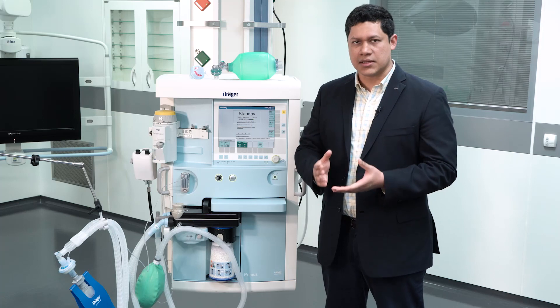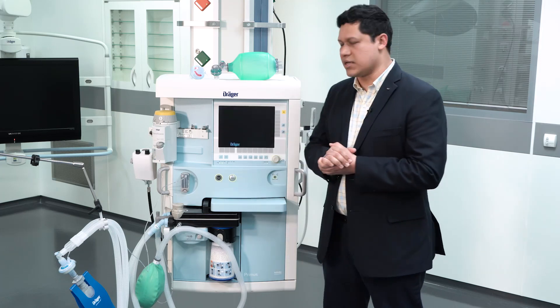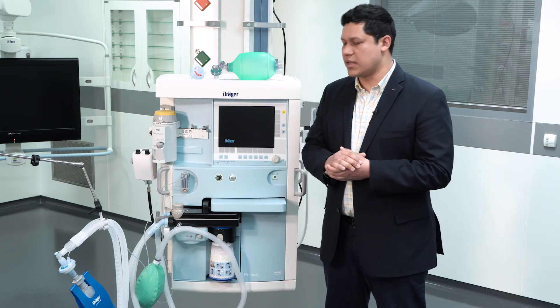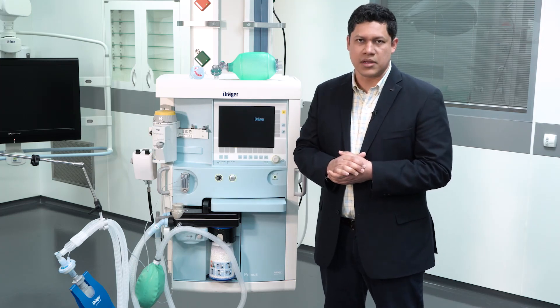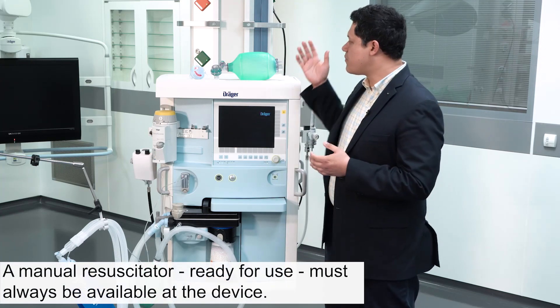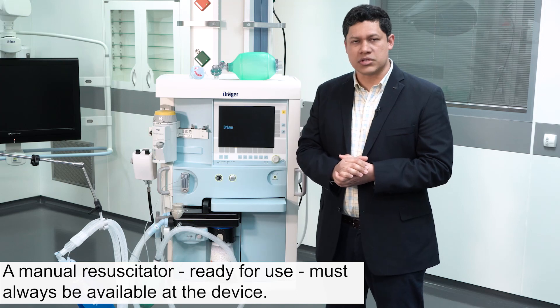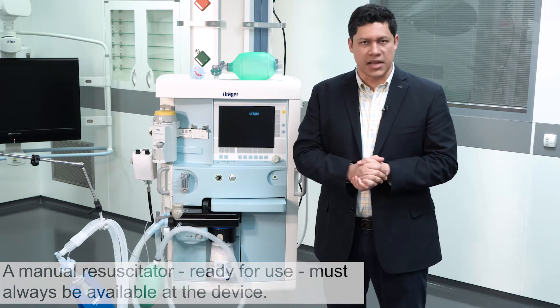Prior to running the self-test on the anesthesia device, you have to disconnect the patient from the respiratory breathing system. During this time, either you can manually ventilate the patient using an external manual breathing bag, or you can use any available ventilator.